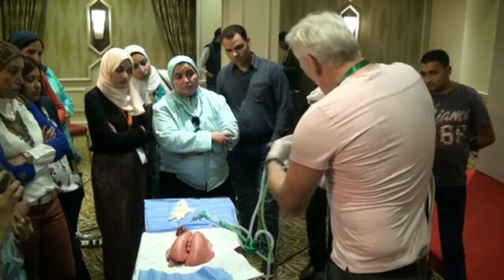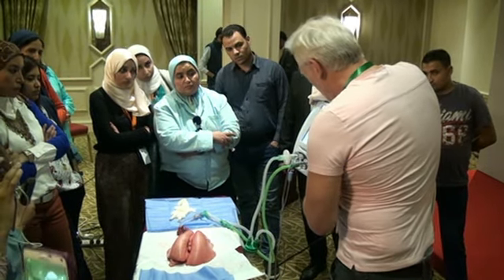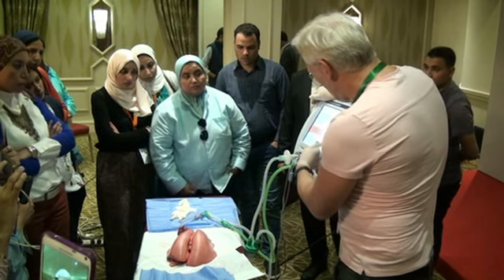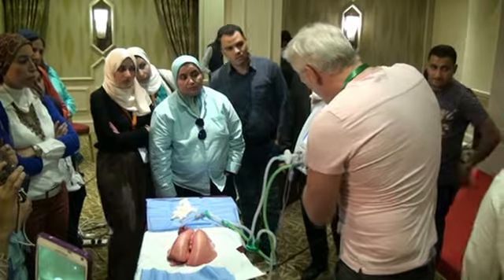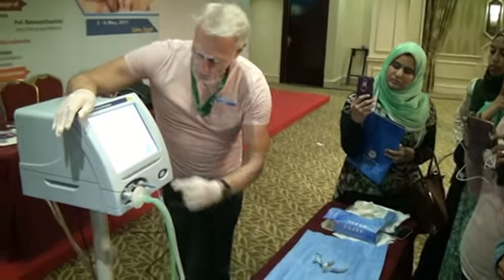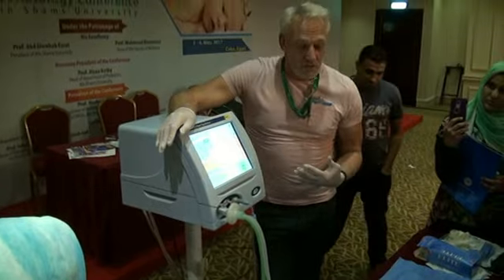If we look at the lung, and I increase the PEEP, let's say I put it to 4, I begin to see a slight difference. Now look at the change. Did you see that change? Let's do that again, where this loop is taking it. I've now got a driving pressure of 28 minus 5, which is 23.